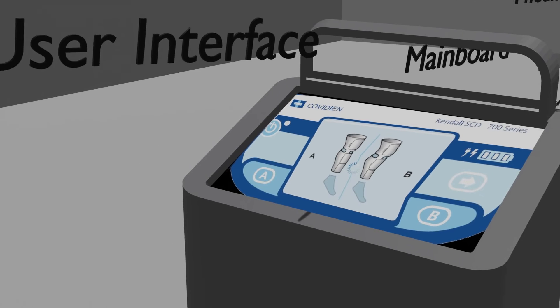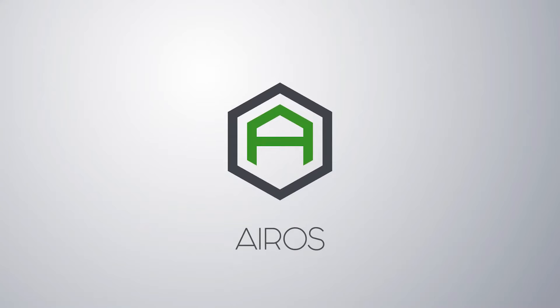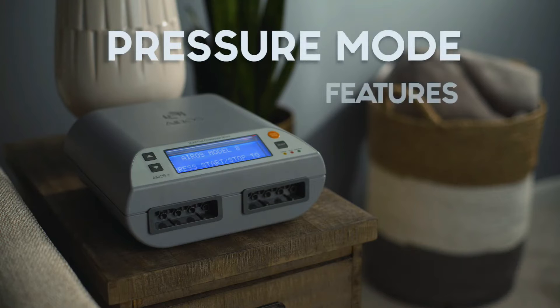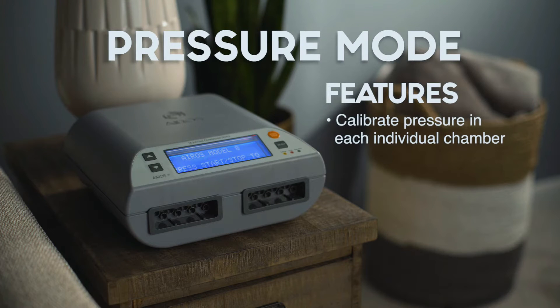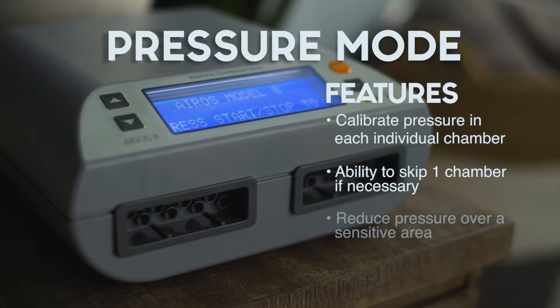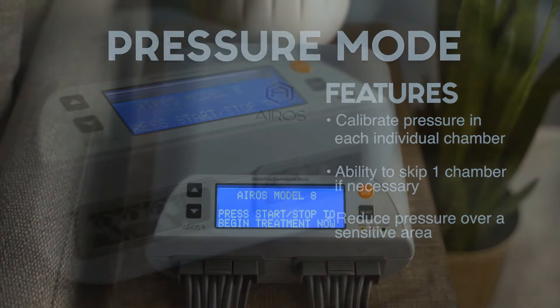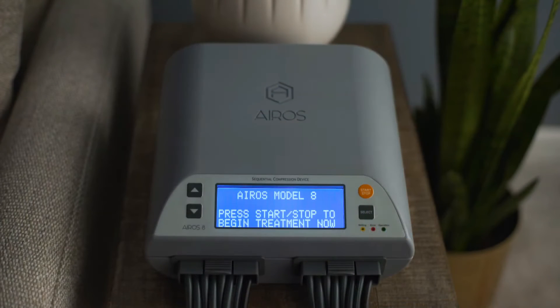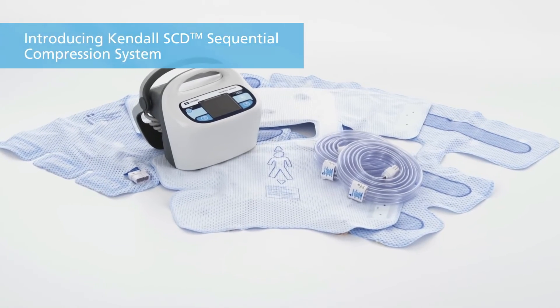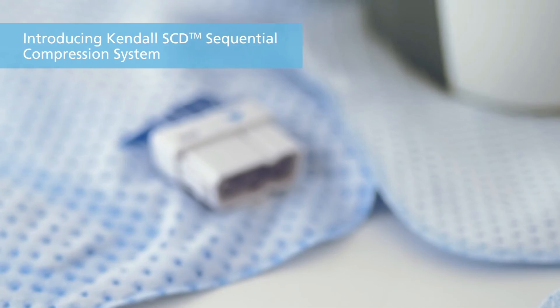Now let's look into the different types of sequential compression devices. There are two types: SCD express devices and simultaneous sequential compression devices. SCD express devices provide alternate sequential compression with customized compression-relaxation cycles in accordance with an individual's separate venous refill times in lower limbs. The simultaneous sequential compression device can provide simultaneous sequential compression of both legs.